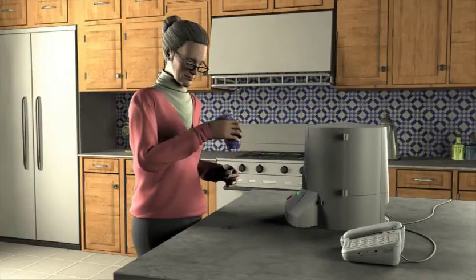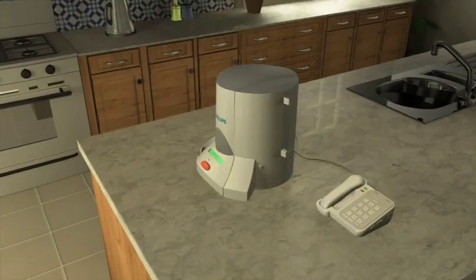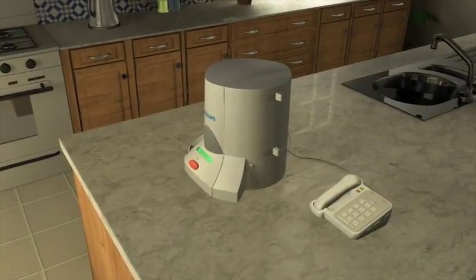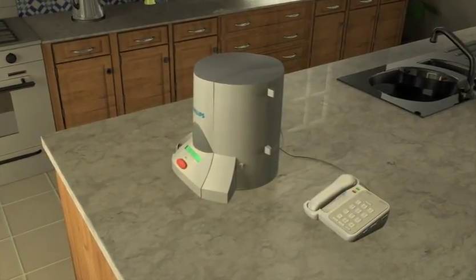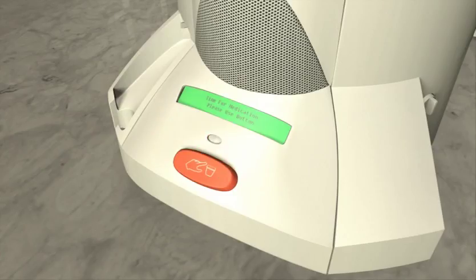To make sure the patient is notified of the scheduled dose, the voice prompts will continue every minute for up to 90 minutes until the button is pushed. Time for your medication. Press button to dispense.